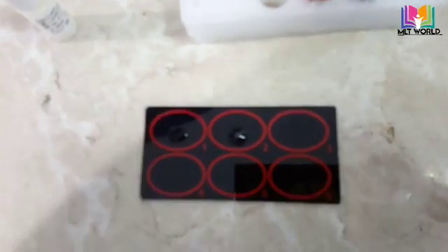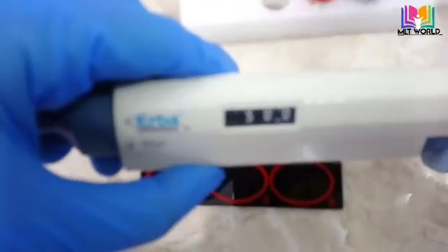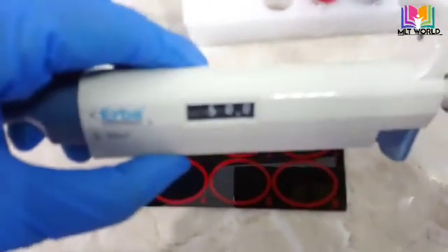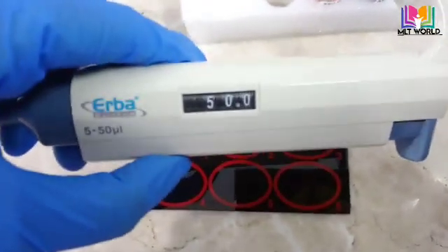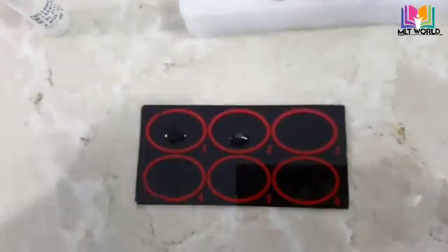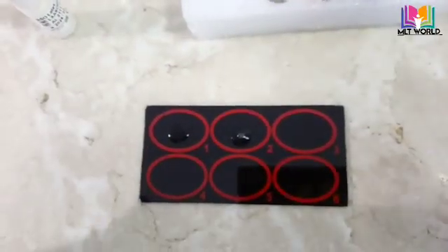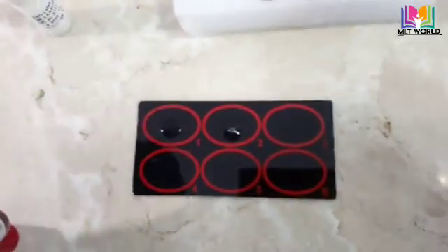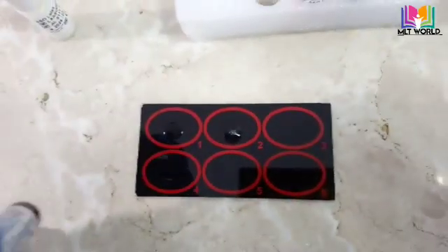First I drop negative control — one drop — and second I drop positive control — one drop. Now we need the patient sample. We will use serum, and we require 50 microlitre, which I will drop in the third circle. The control reagents come together with the kit.